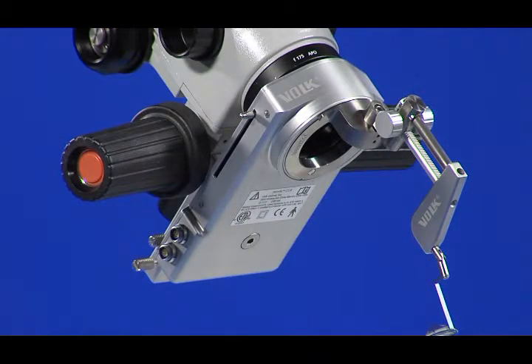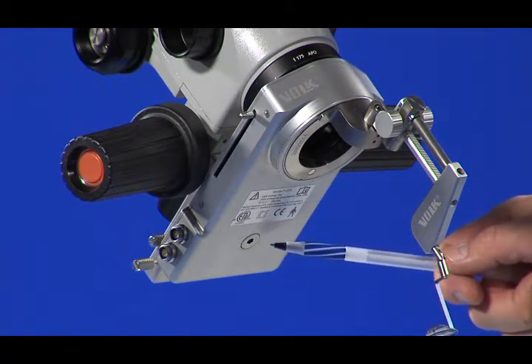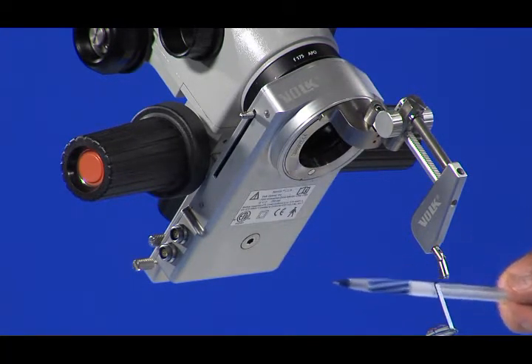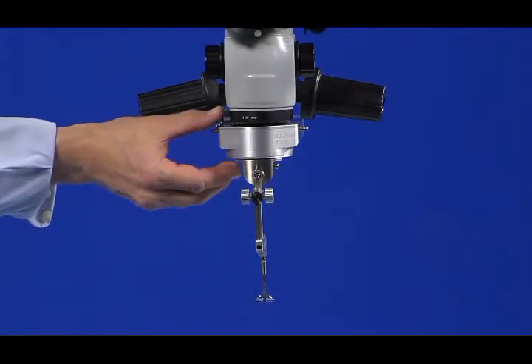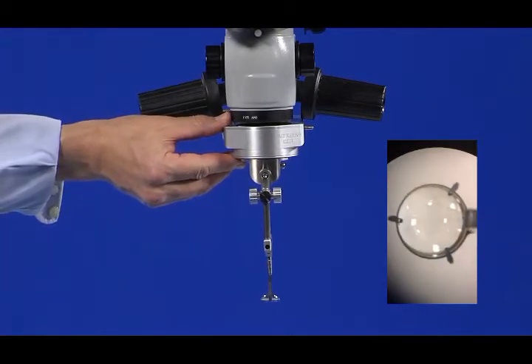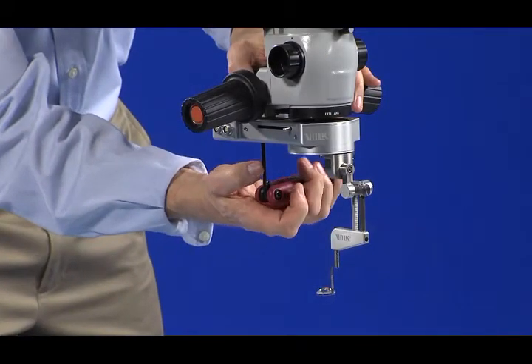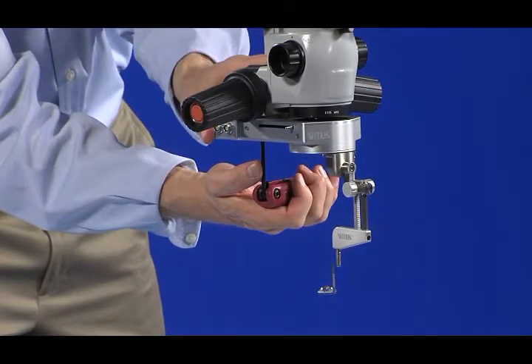If needed, adjust the left-to-right position of the CLA by loosening the dovetail bolt slightly. To loosen the dovetail bolt, use a 5/32 hex wrench. Pivot the CLA on the bolt left or right to align the lens in the scope's field of view. When the view appears centered from left-to-right, tighten the dovetail bolt using the hex wrench.